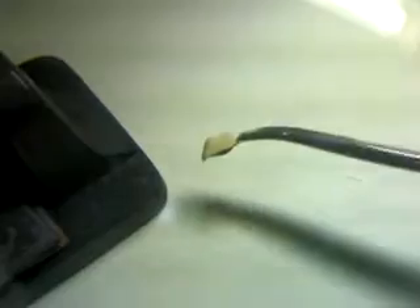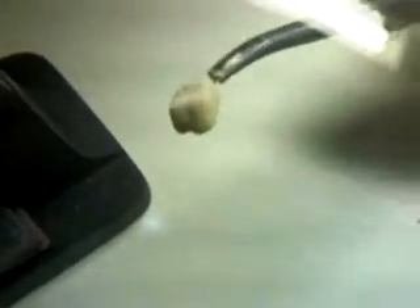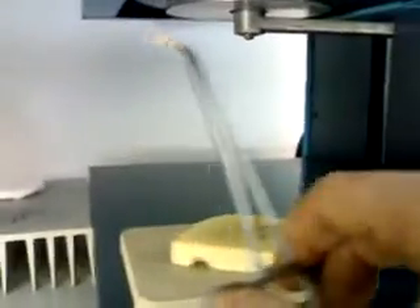Let me see if I can show you the surface here. Maybe this is better — so this is how my surface must look. It's masking well; the opaque is masking well all of my metal surface, and the first masking of opaque has done its job. So now we can put it on the tray, as we've done before. We put it on the tray, and we are careful while putting it on the tray to not let it fall off the stands.